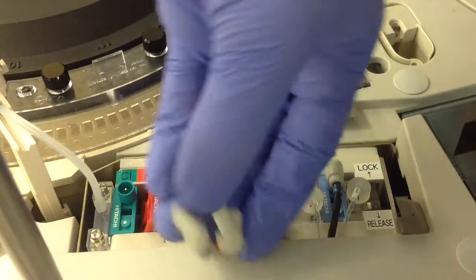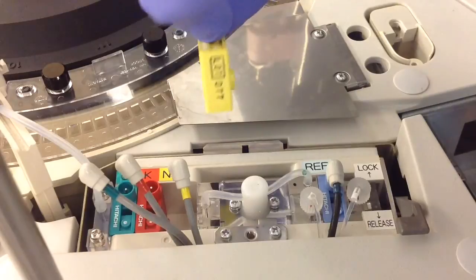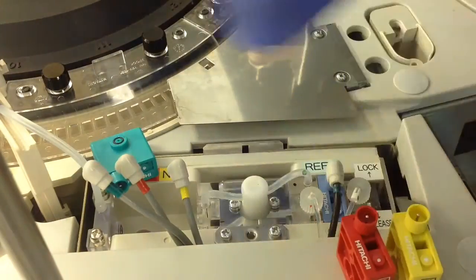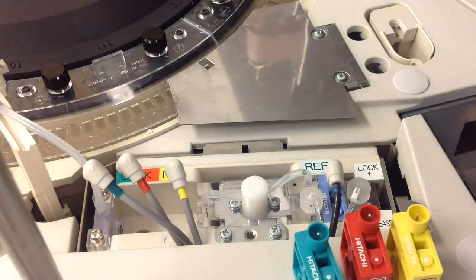After you've unplugged the cables, you can go ahead and start to actually remove the measuring cartridges. Just keep in mind which way they're facing so you can put them back in easier. The mechanism likely won't let you switch from release to lock if they're in the wrong orientation, but getting it right the first time saves a little time.